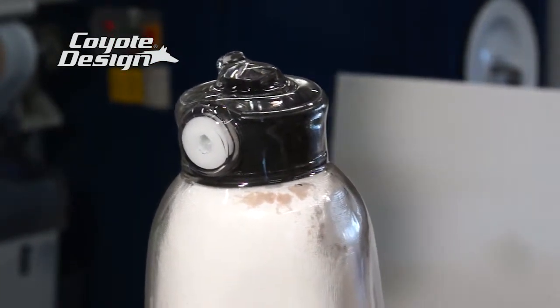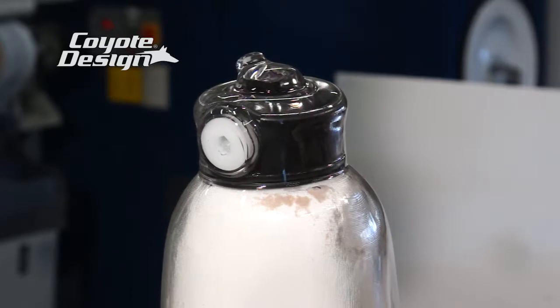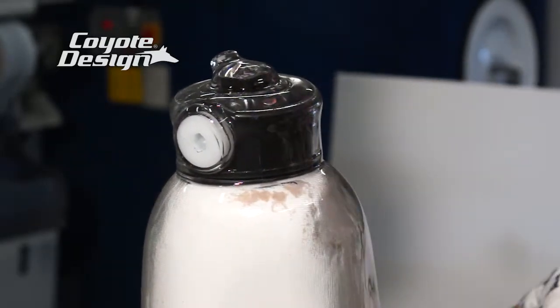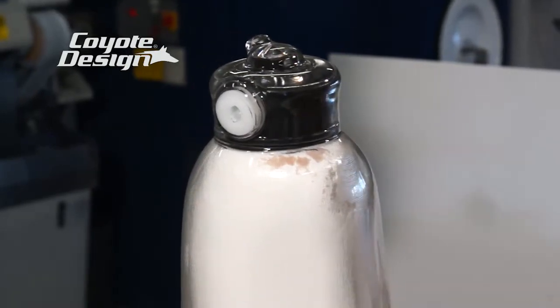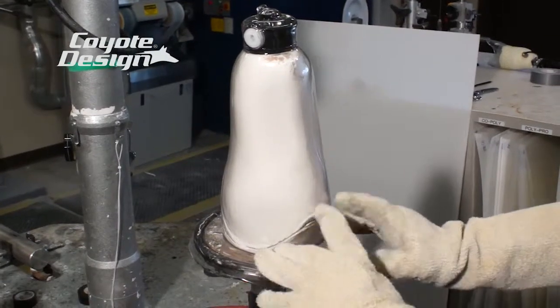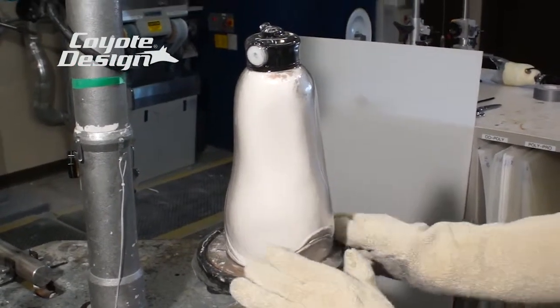You can see that drawing around that lock — you don't even have to mess with the string or anything on it. It's sucking in just like it's supposed to be. As soon as that cools, cut it out. Either knock it off the cast, chip the cast out, whatever you like to do.